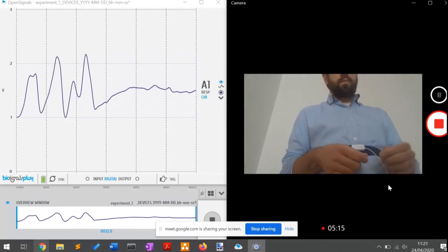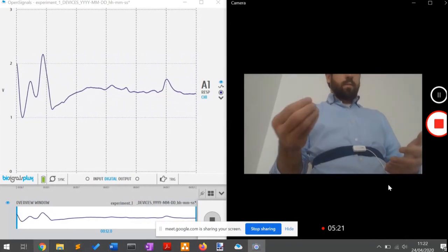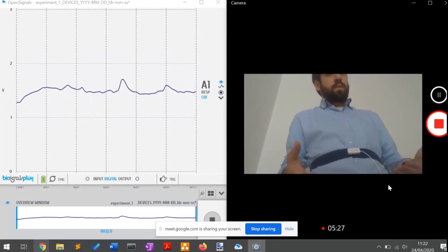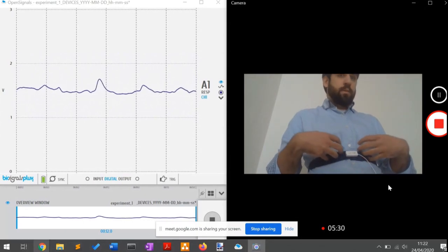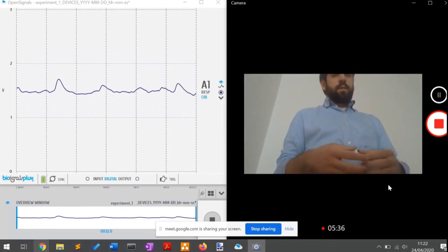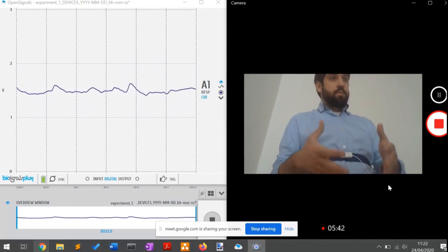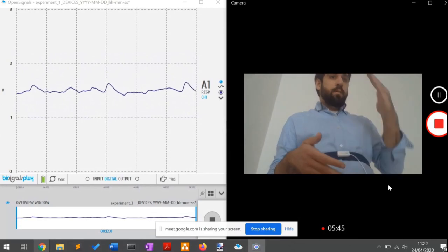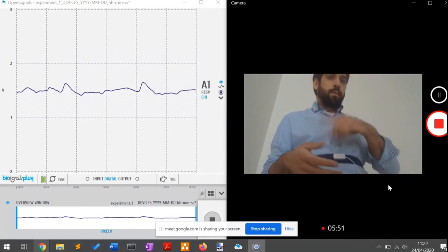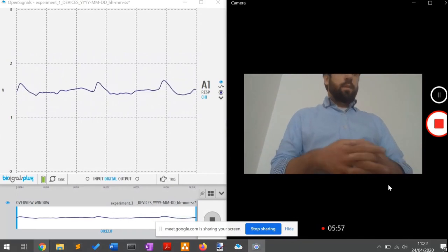We're working with raw data, and we unfortunately cannot just extract only the movement caused by the respiration itself — the sensor also captures the movement around it. Fortunately, the sensor is robust against it. So even if we have these motion artifacts, we can still clearly see the main parts of the respiration and the characteristic sinusoidal waveform. Even with a little bit of motion artifacts, this data is not lost.